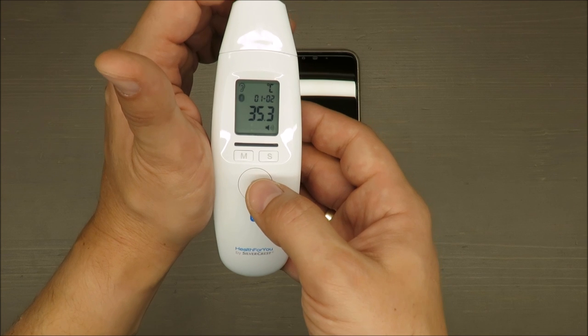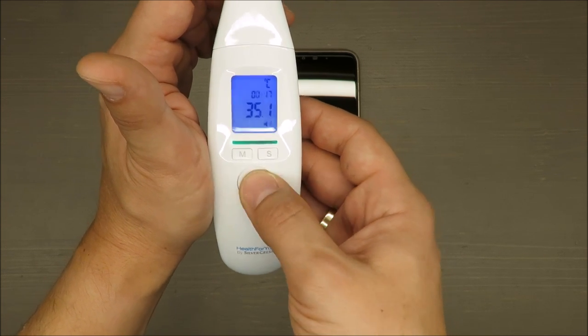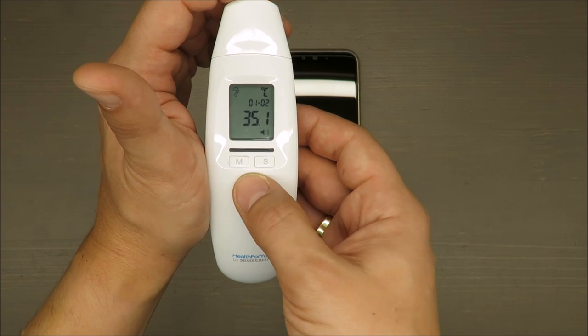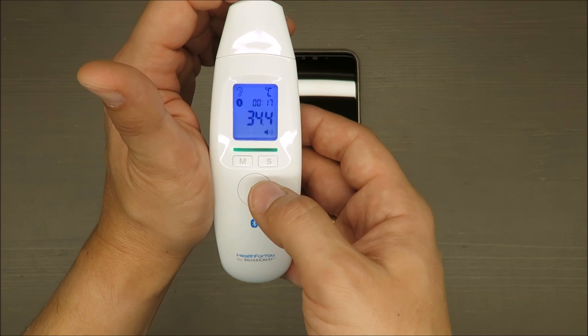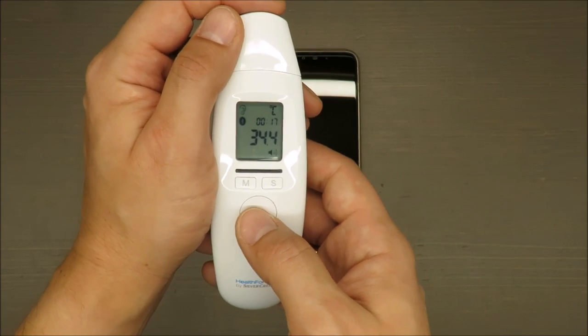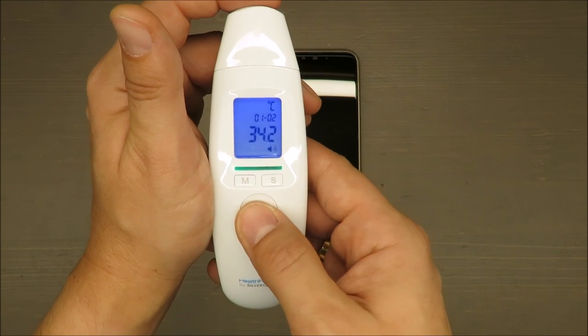Okay, now we are measuring something, because at least it's showing almost the same digits. So I should, I can say, and now I was almost saying that I'm trusting this device, but I'm not.